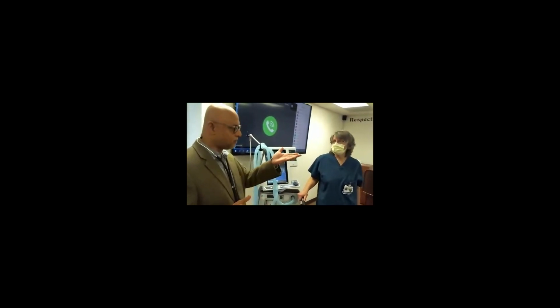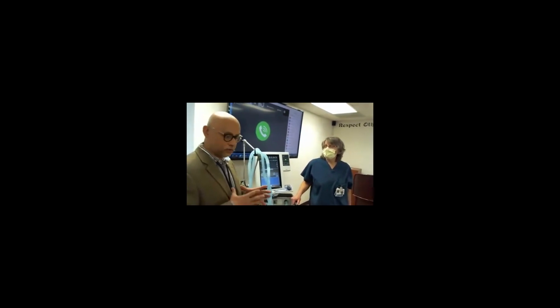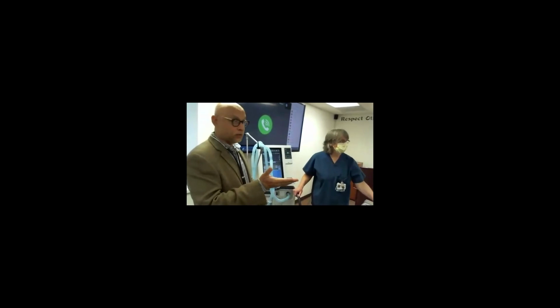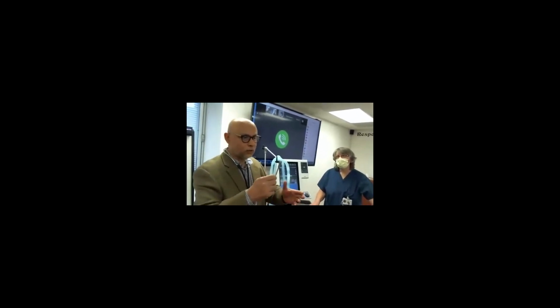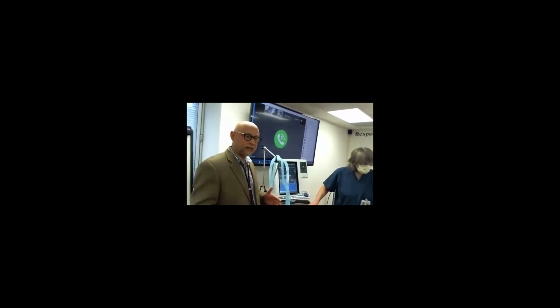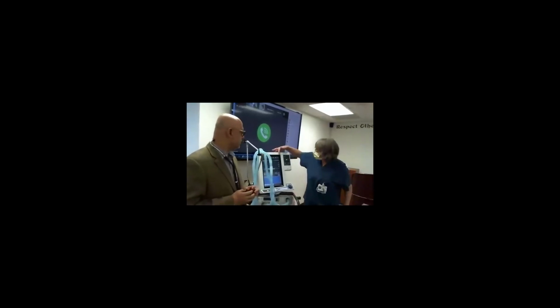This is used in pediatrics. I don't do pediatrics, but in pediatrics they have to look at the compliance of the tube because the tube gets a little bit stretched out. It's that dead volume that's in your tube. That volume will increase too with a longer tube. Some institutions, to prevent exposure or more frequent exposure, have put the ventilator outside the room and closed the door, but then you have a longer dead space. Then you have to compensate for that space because dead space ventilation doesn't do anything for oxygenation. So you have to change the whole setting, seeing all those things.